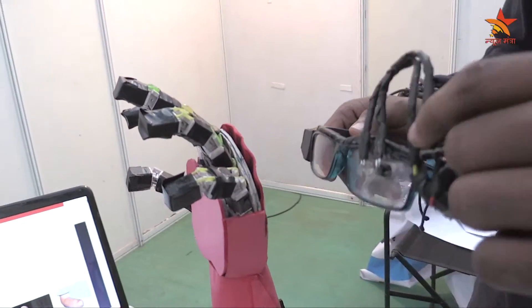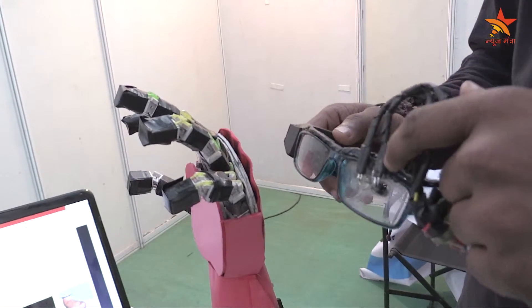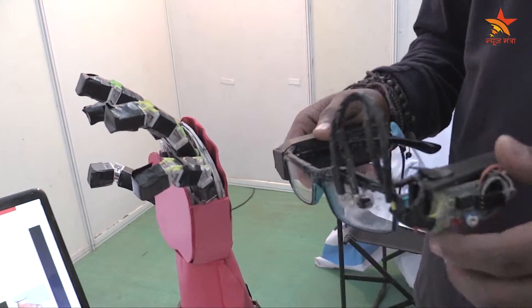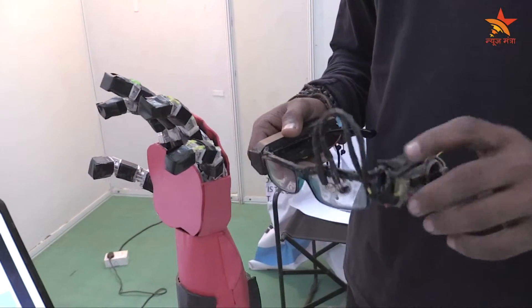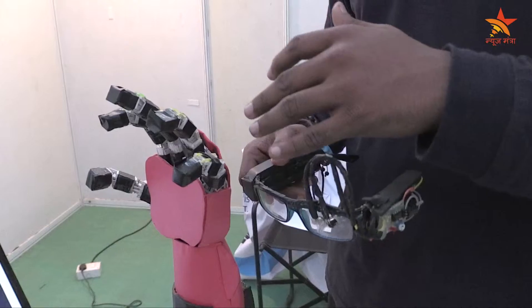The degrees of freedom will be controlled by this device. It has a pair of IR LEDs to detect eye movement. You have to close the left eye for 3 seconds to place it somewhere.